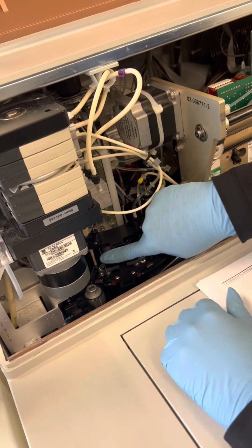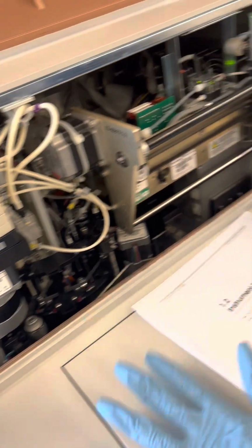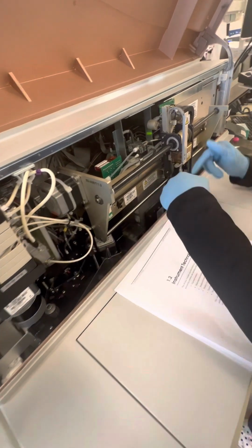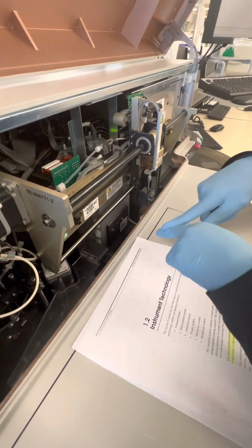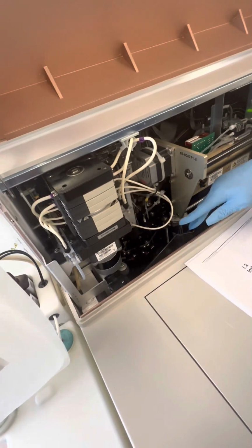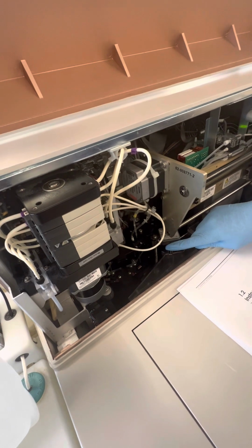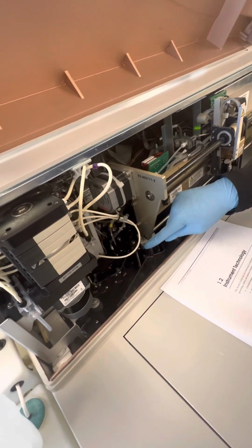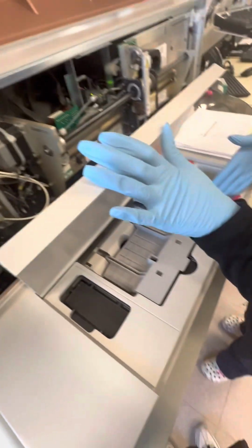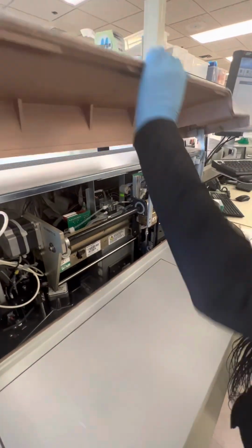The substrate probe specifically pulls the substrate to add it to the reaction vessel, which we've seen in this part, for it to then be added with our patient sample. The rest of these fluid probes are used to add the reagents and the wash buffer if dilution is needed, and to dispense and remove the liquid waste into our waste container after everything is done. So that's how this part works.